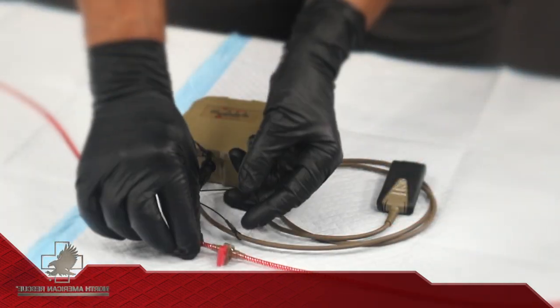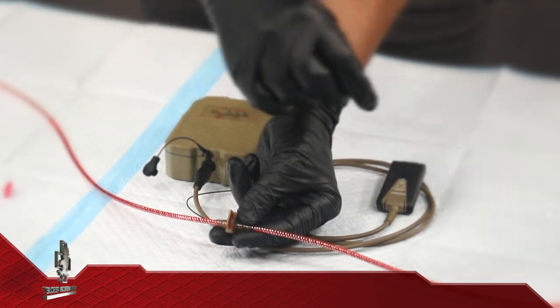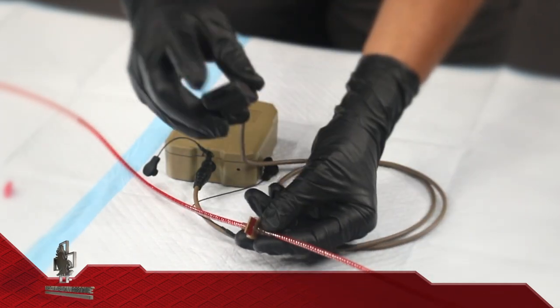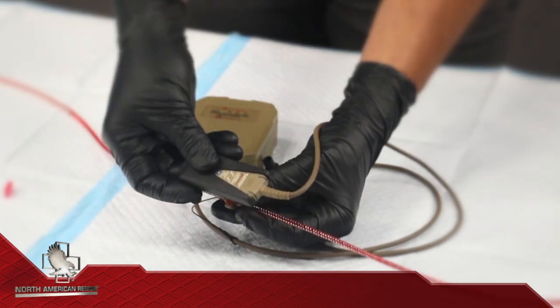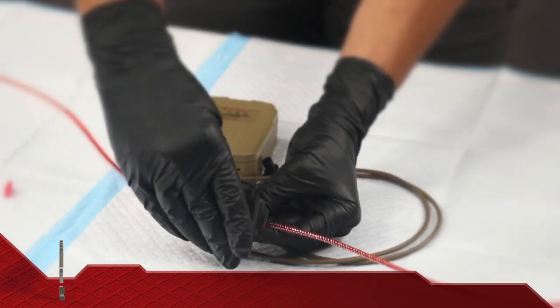Remove the protective red cover from the circuit card at the midpoint of the tubing set. Attach the controller to the circuit card through the slot in the black rubber jacket. Either orientation works. Make sure this jacket is in place during operation.